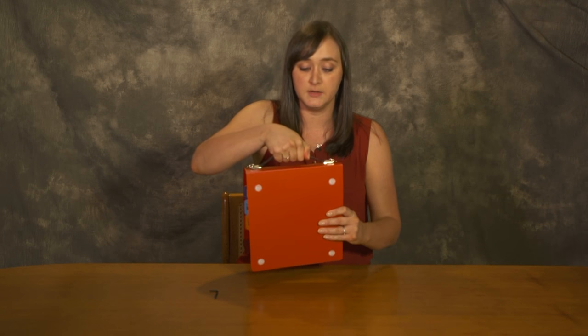On the back of the spine is a handle, so the clinician or the child can carry the communication system using the handle.